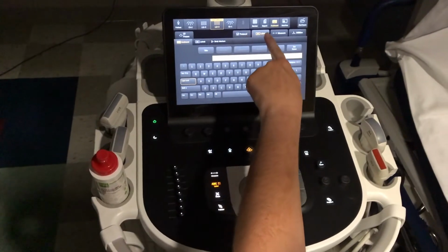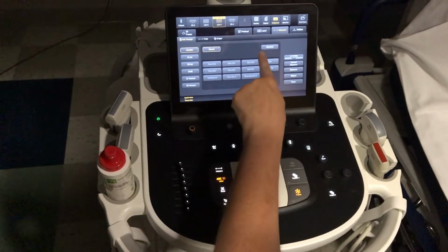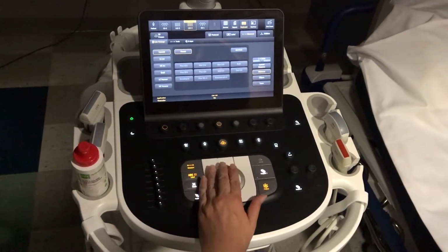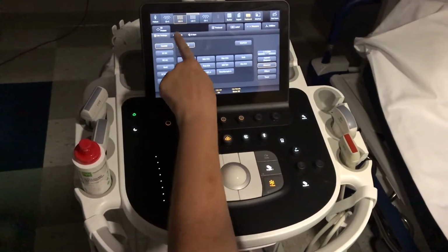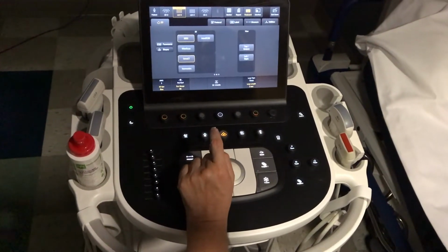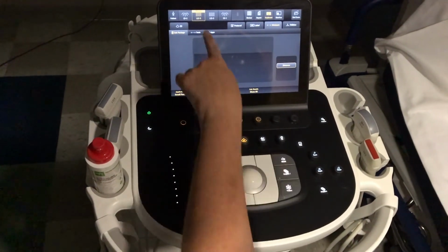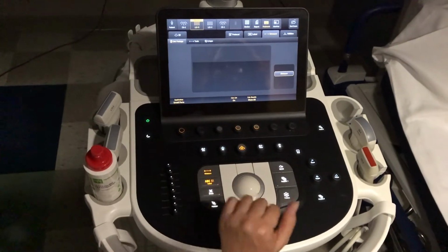You'll notice these tabs up here. You can go from the annotation screen to a measurement, and it'll ask, you can assign this to different packages if you want, or just go back to labeling and then measure separately on your own. Now, depending on what the transducer is set on, when you make a measurement, you can put it into a calc package that will be set up for what you've selected on your transducer, as long as the patient has been selected.